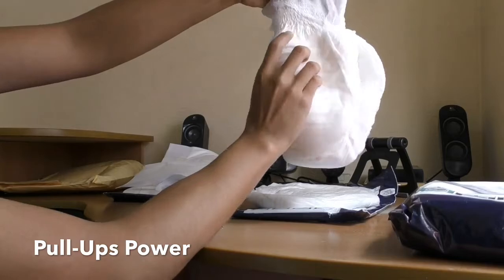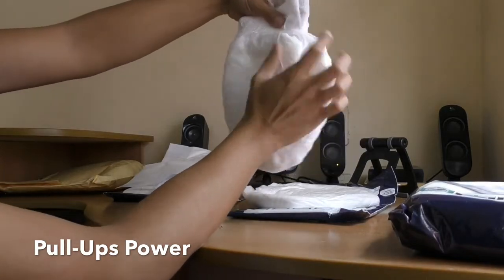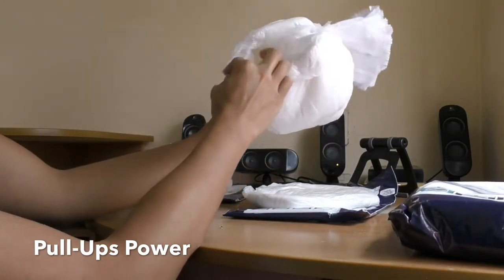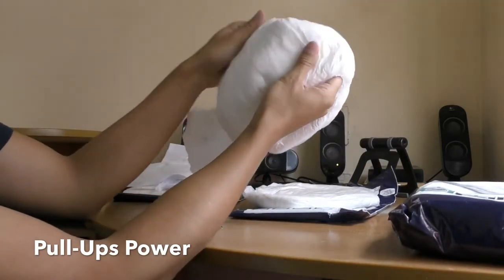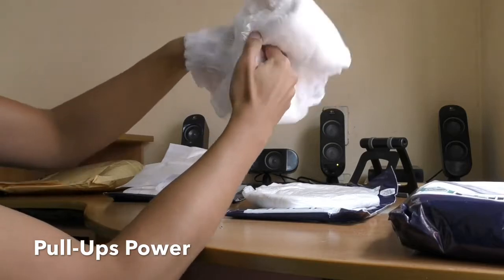It has barrier on the top, double barrier on the sides, and it feels super comfy.